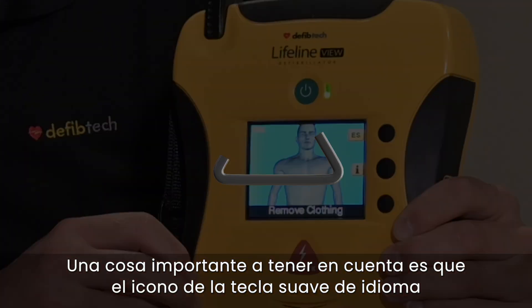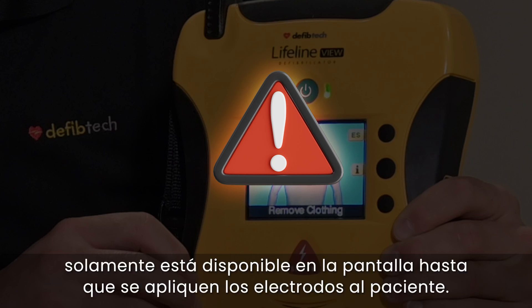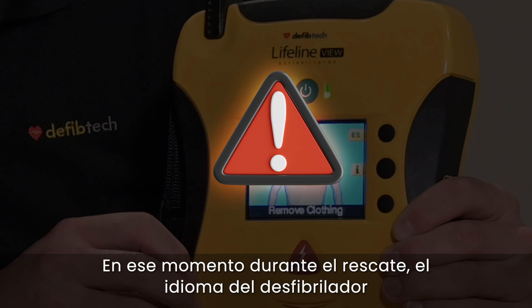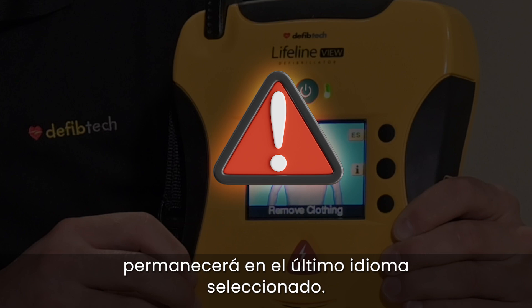An important thing to note is that the language soft key icon is only available on the screen until the pads are applied to the patient. At that point during the rescue, the language of the AED will remain in the language last chosen.